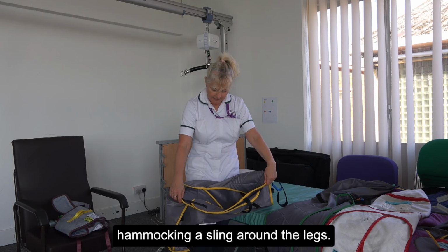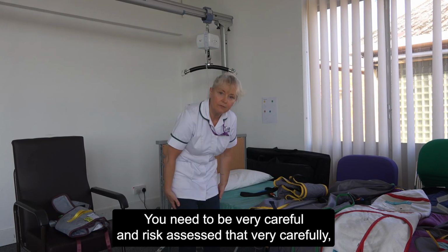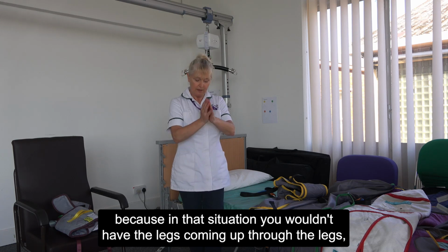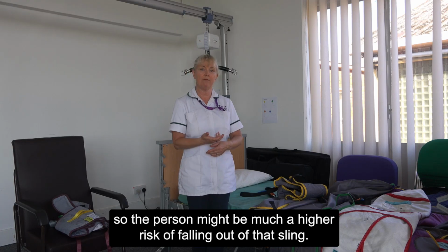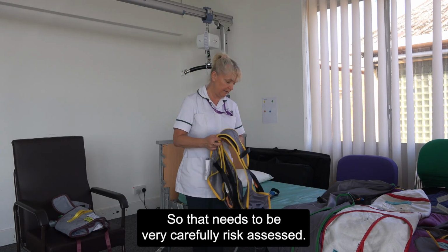With hammocking a sling around the legs, you need to risk assess that very carefully, because in that situation you wouldn't have the legs coming up through the legs, so the person might be at much higher risk of falling out of that sling. So that needs to be very carefully risk assessed.